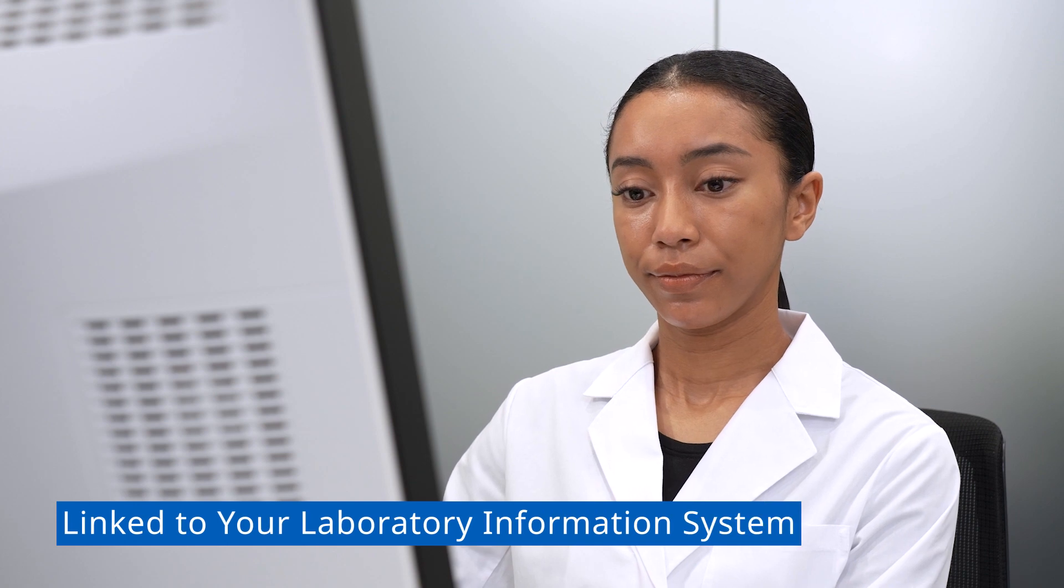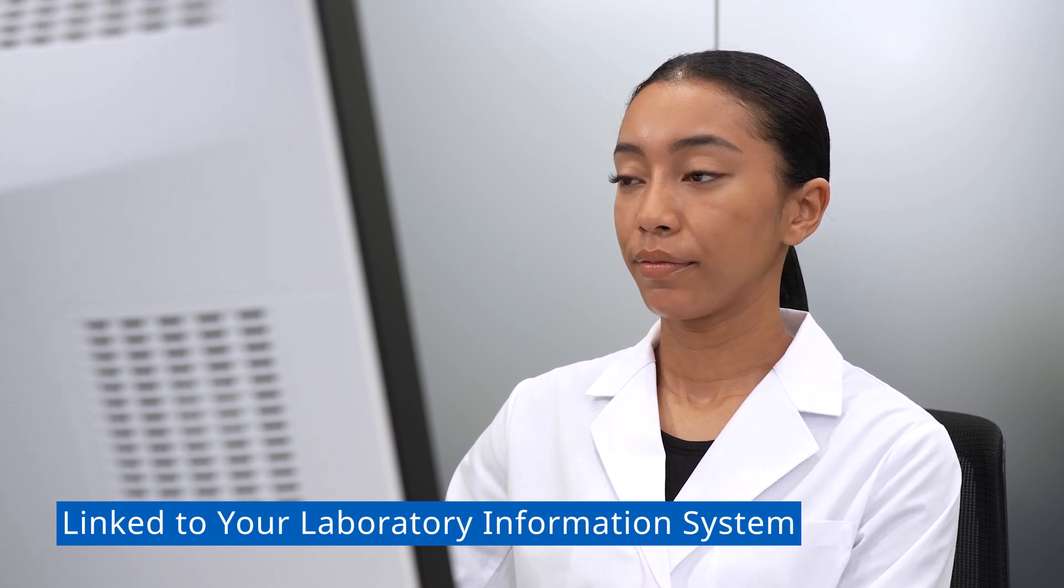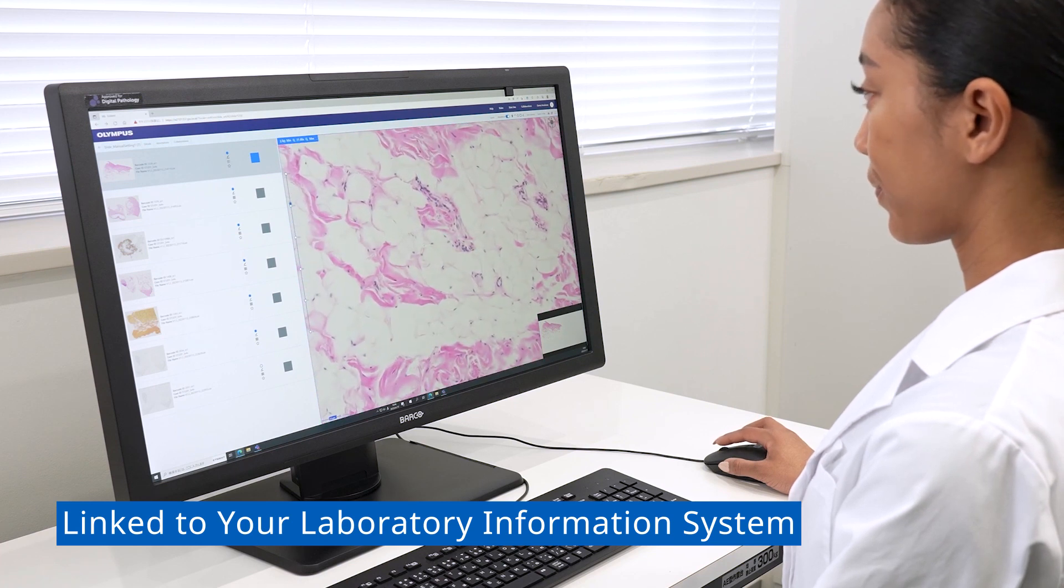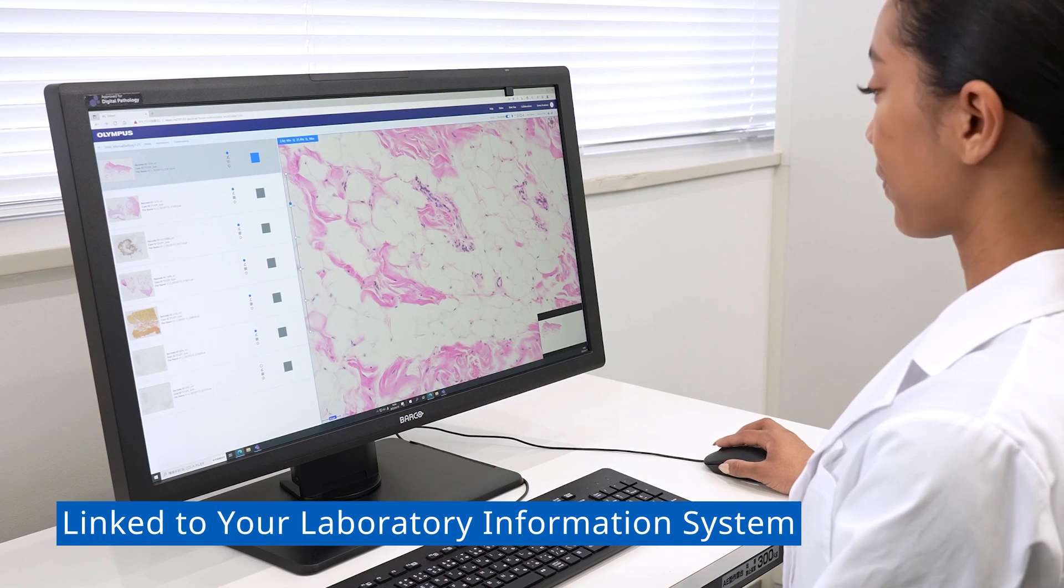The scanner can integrate with your lab information system, or LIS, to display the slide image and patient information on one monitor. The layout and functionality are intuitive and easy to learn.